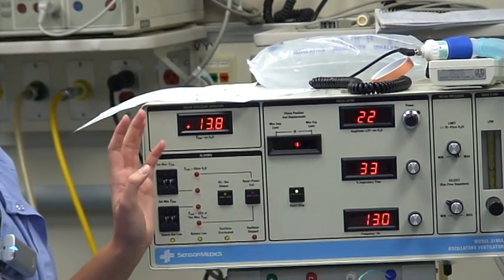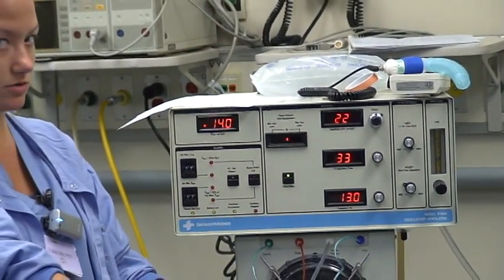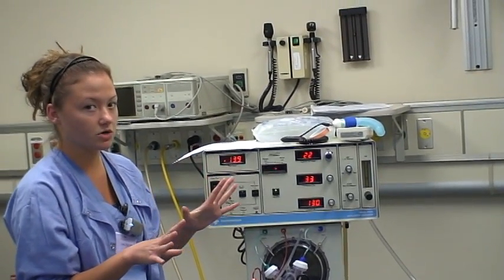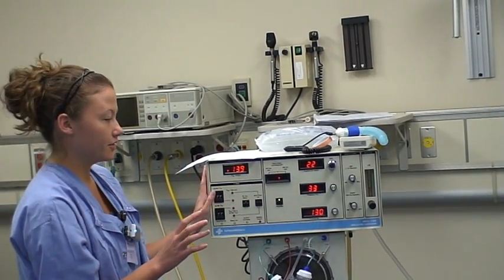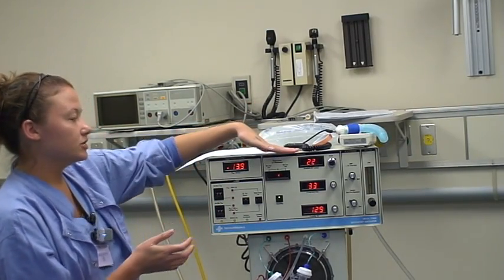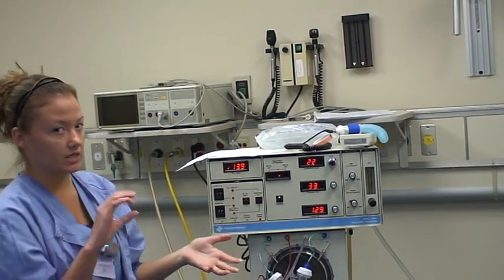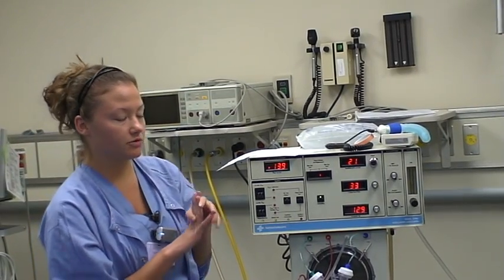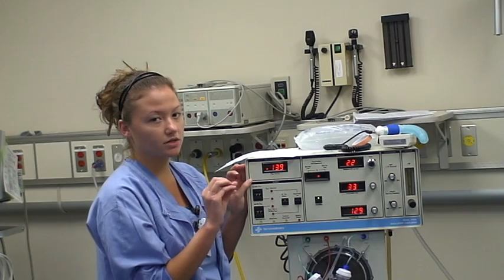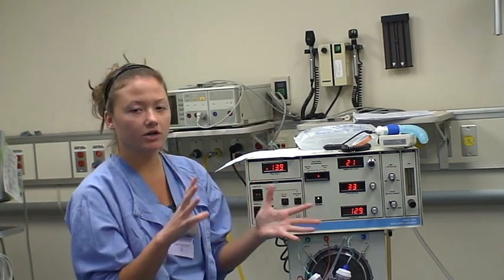Right now we have it blocked by the end piece, so it's maintaining the pressure inside the expiratory limb. You're going to want to make sure that you set all your settings before you actually hook it up to the infant. The amplitude is going to be responsible for your CO2 removal — or keeping CO2 in your infant — and it's going to be reflected in your blood gases. It's usually set around 23 to 25 centimeters of water pressure. It's basically your tidal volume in pressure form.